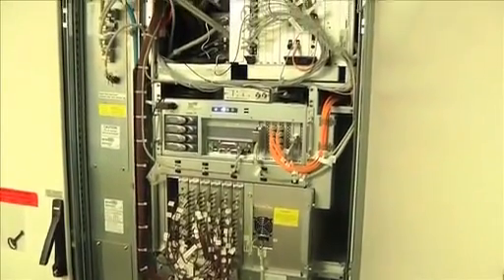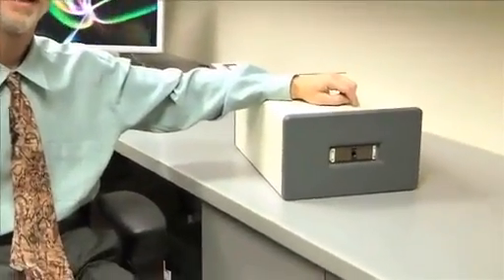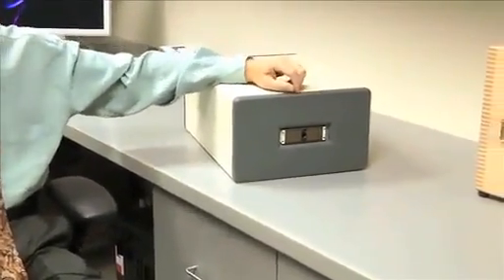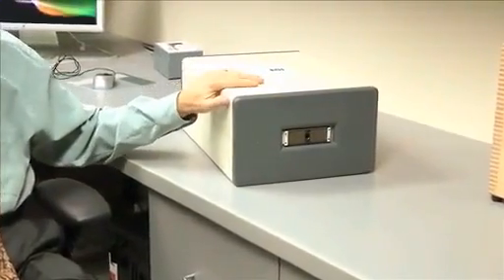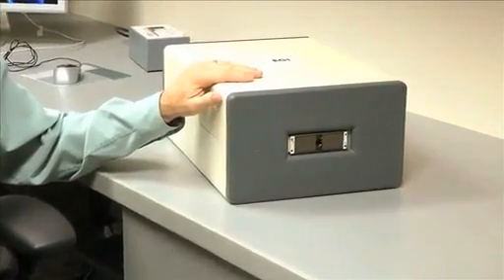The EEG amplifier is designed specially by electrical geodesics to operate in very close proximity to the imaging magnet. Virtually all of the ferromagnetic components of the amp were removed, which was then enclosed in the Field Isolation Containment System, or FIX.